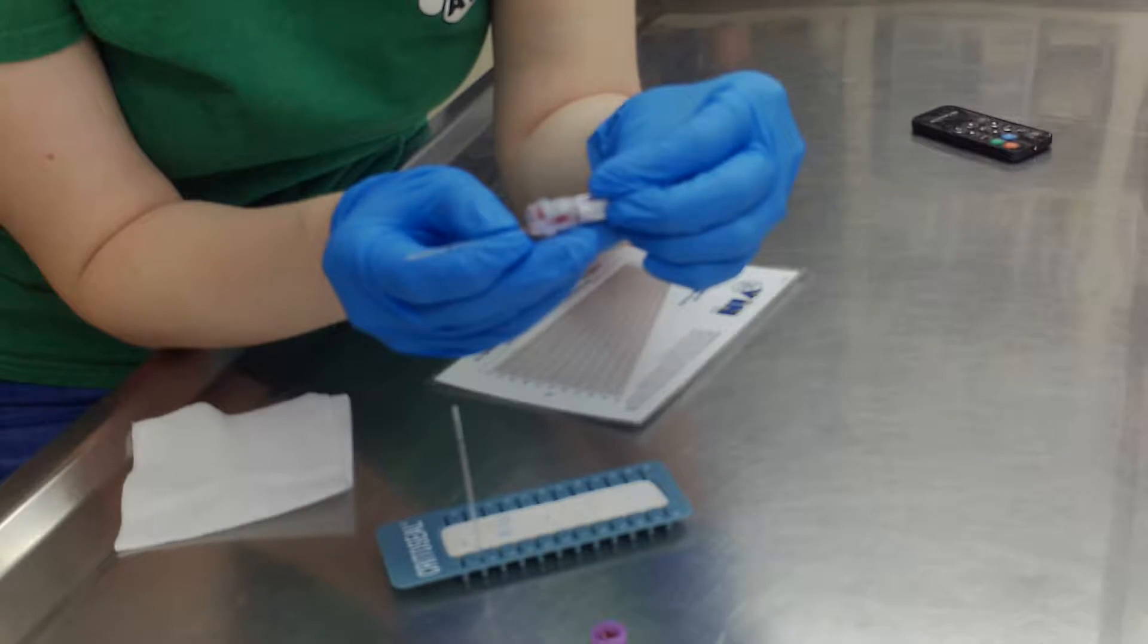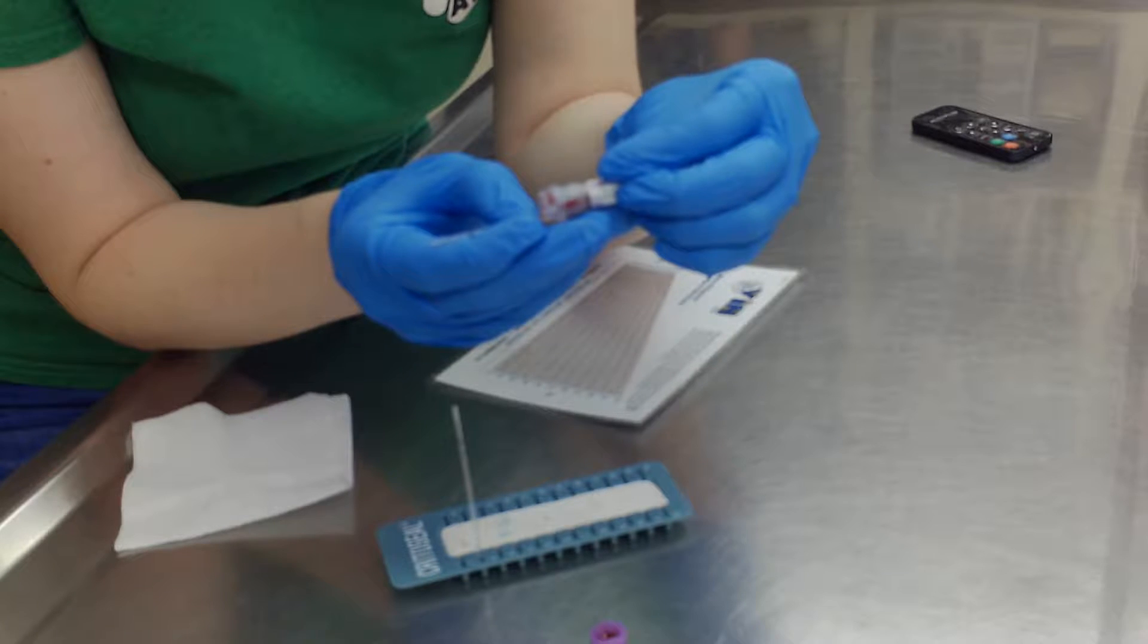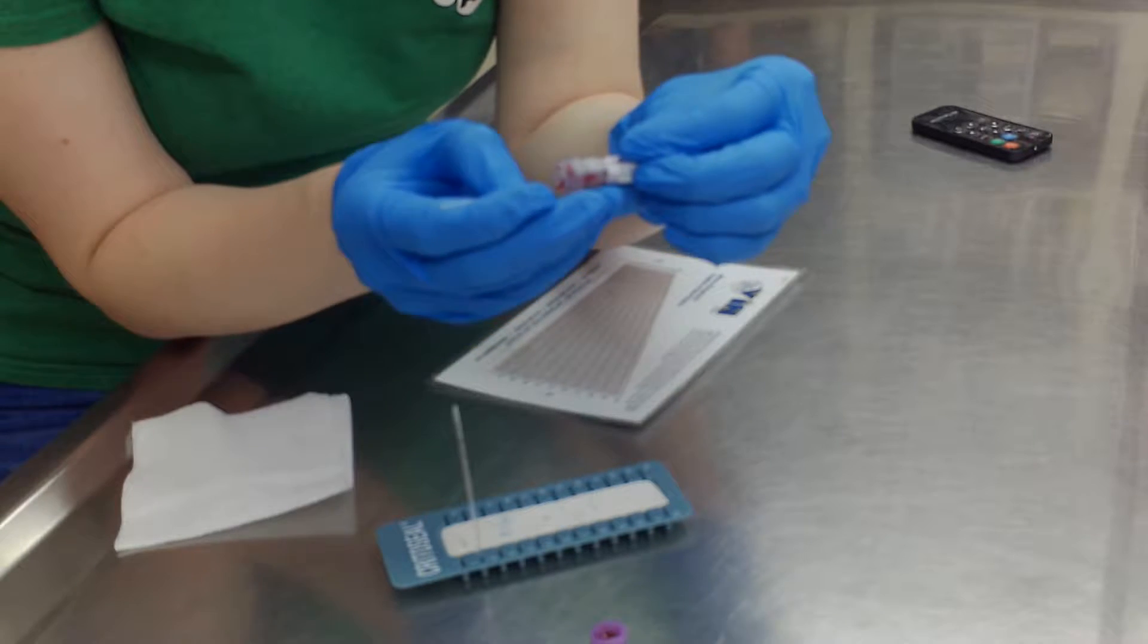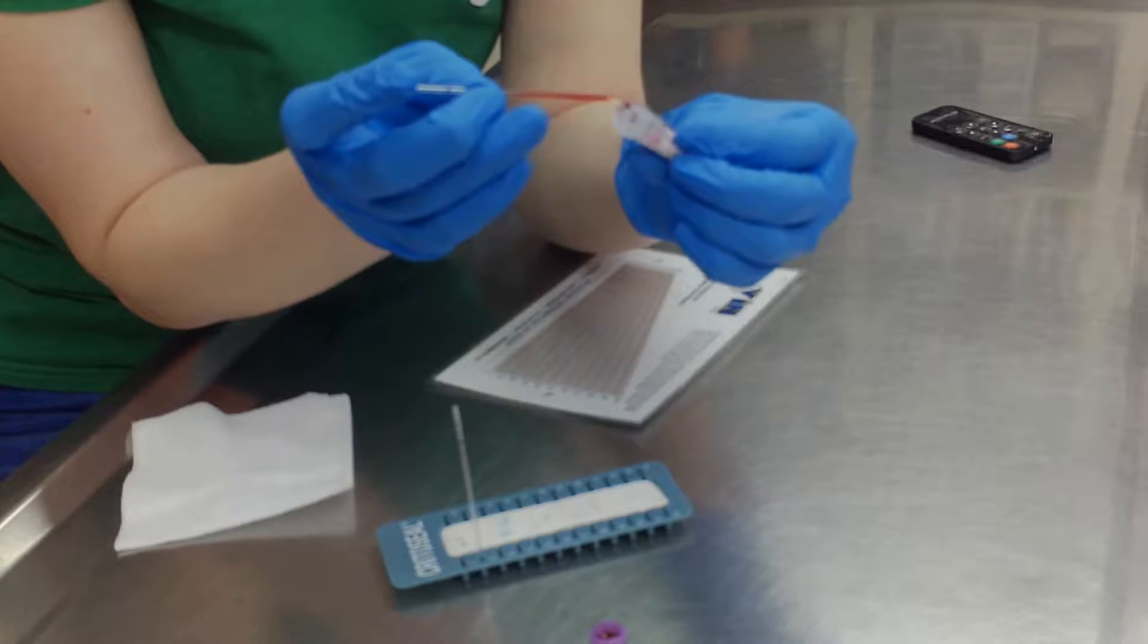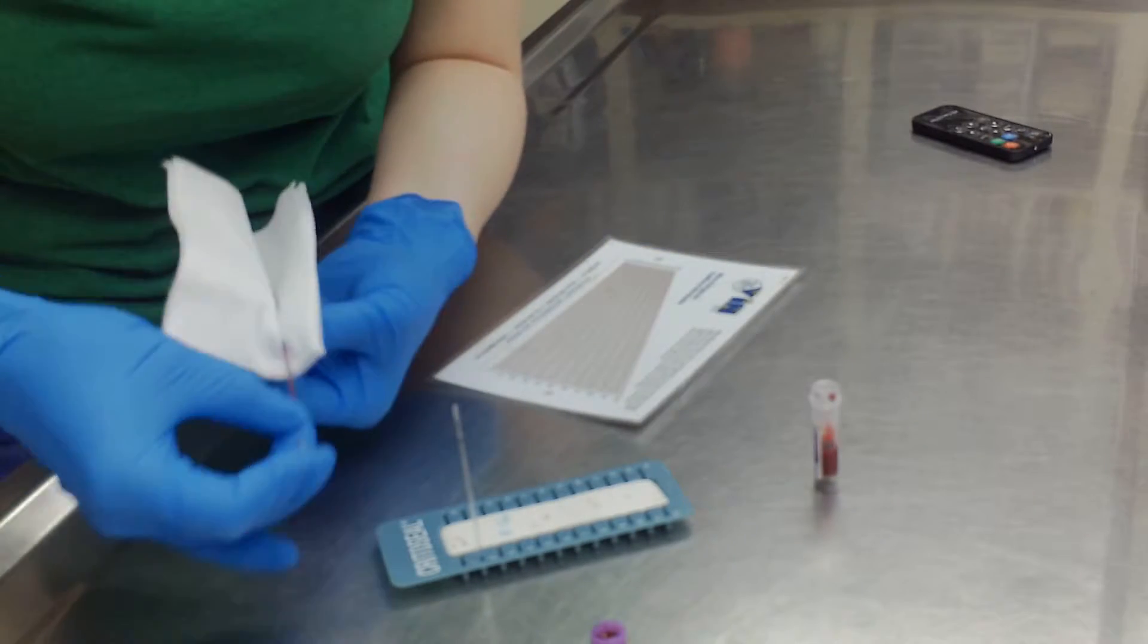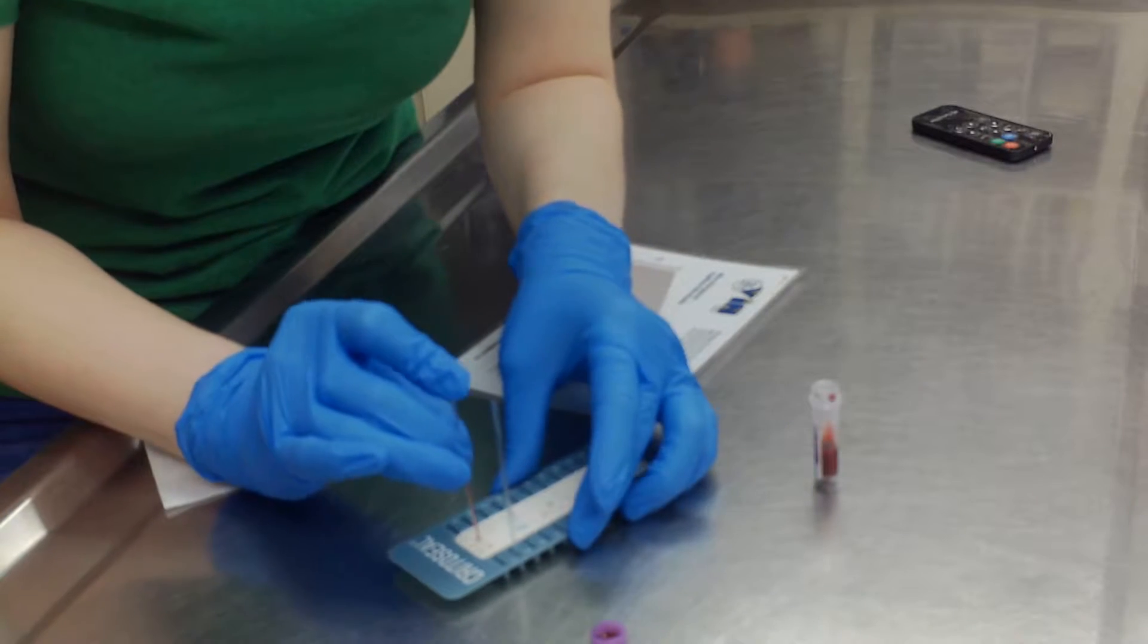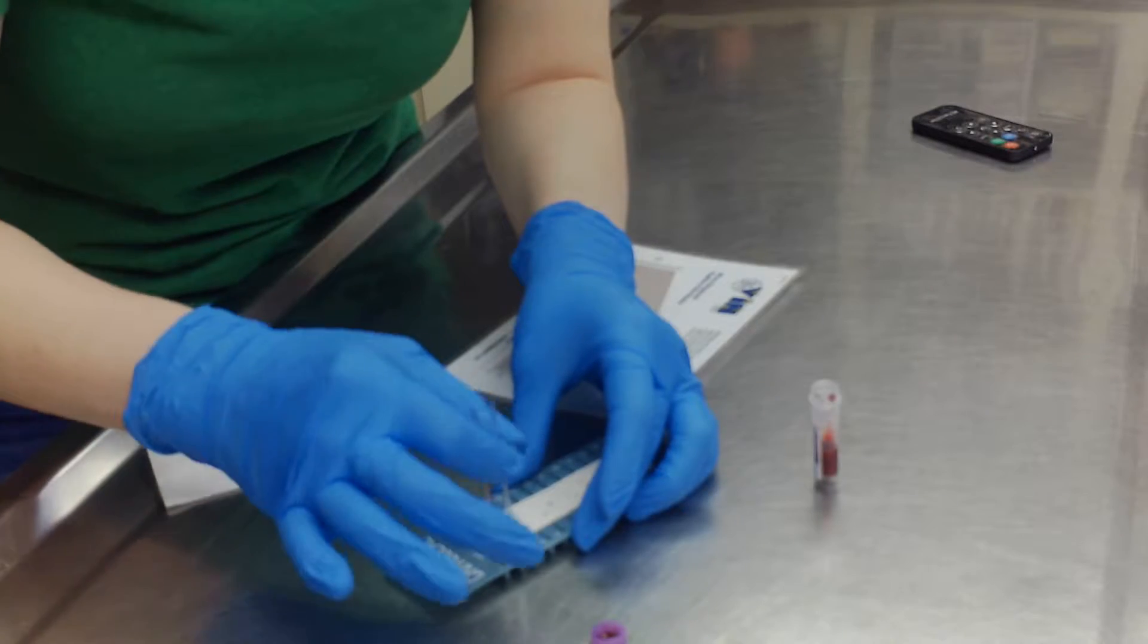Here we go. That's pretty good. I'm going to wipe it off before I stick it into the clay. I'm going to make sure we've got a good seal in there. I'm going to do the same thing with the other tube.